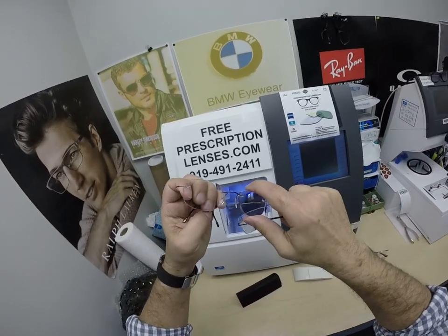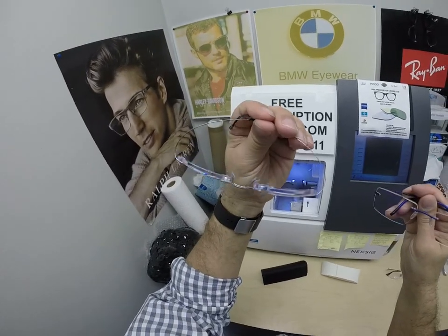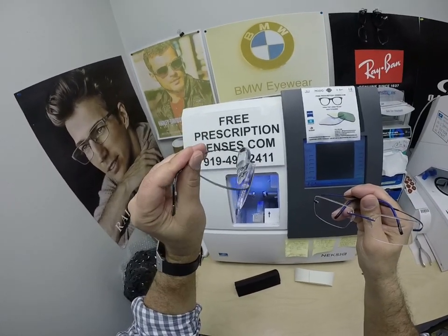So, what is the difference? The pros and cons of both. Let's start by saying they're both free. Whatever you want — I'll polish the edges. That's what Jay wanted, that's what Jay got.